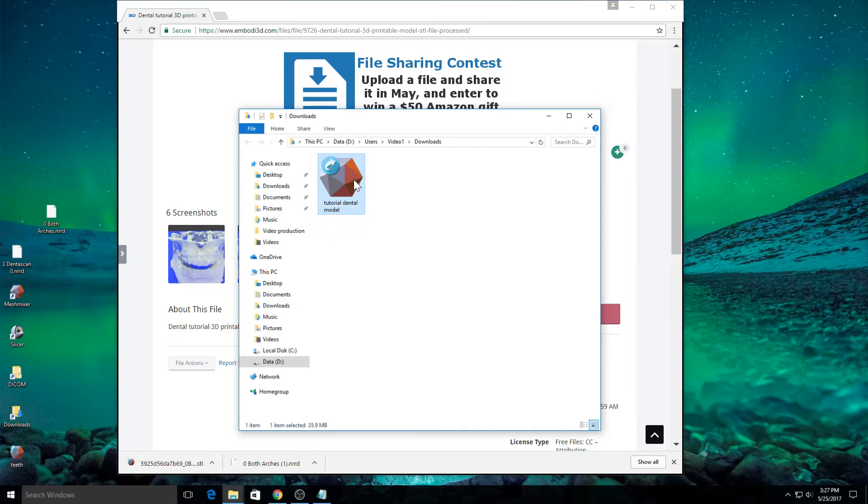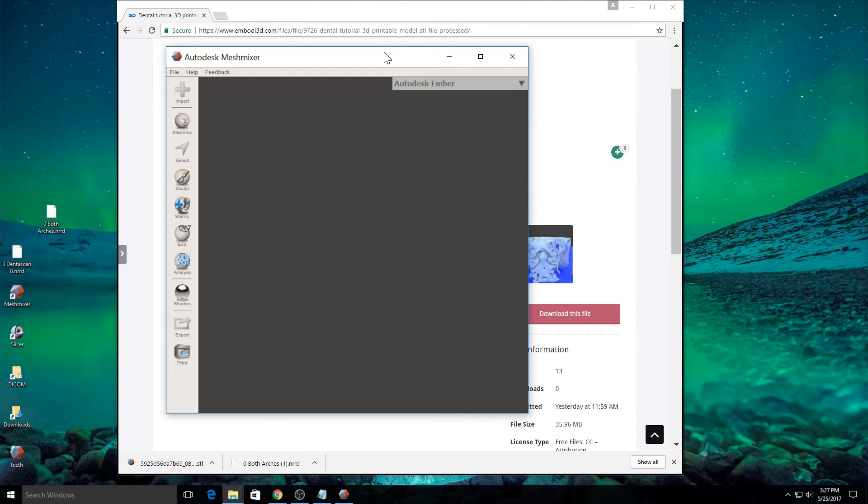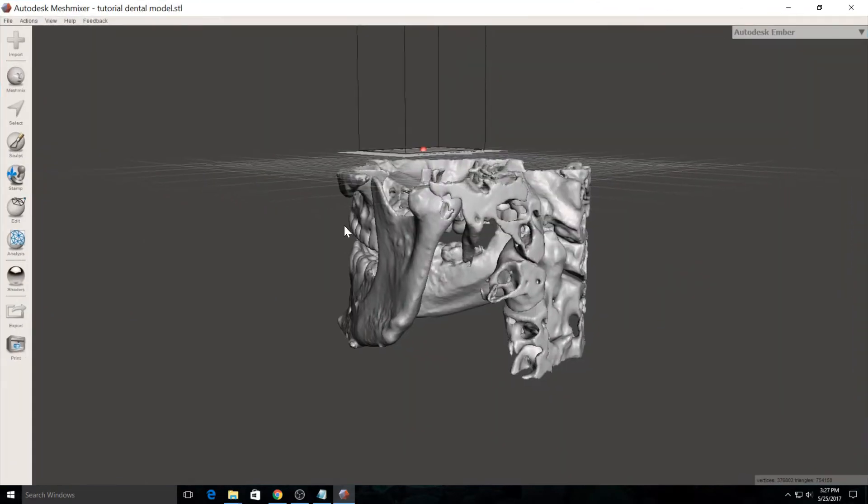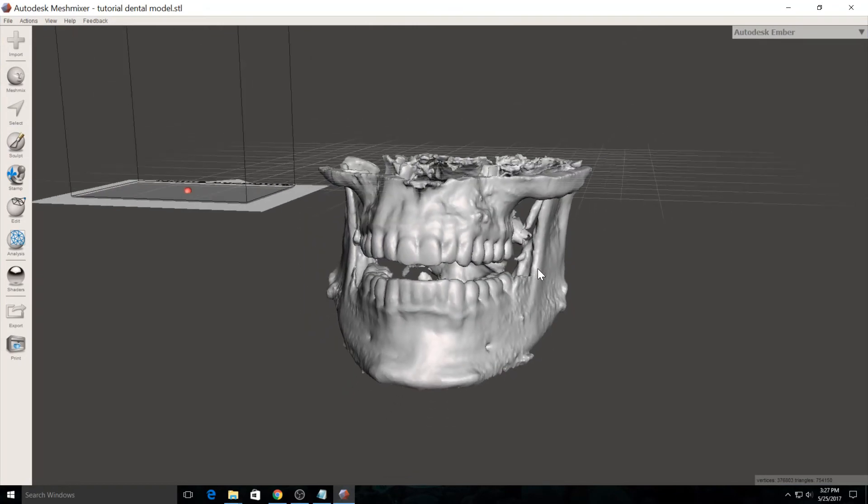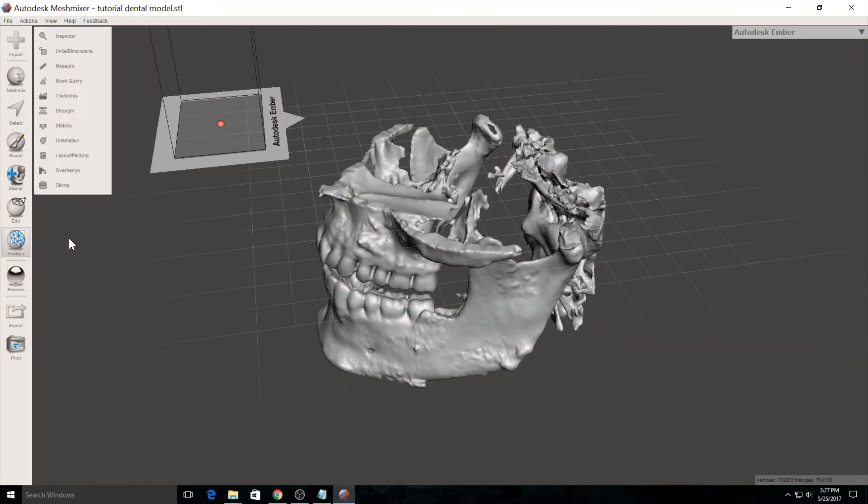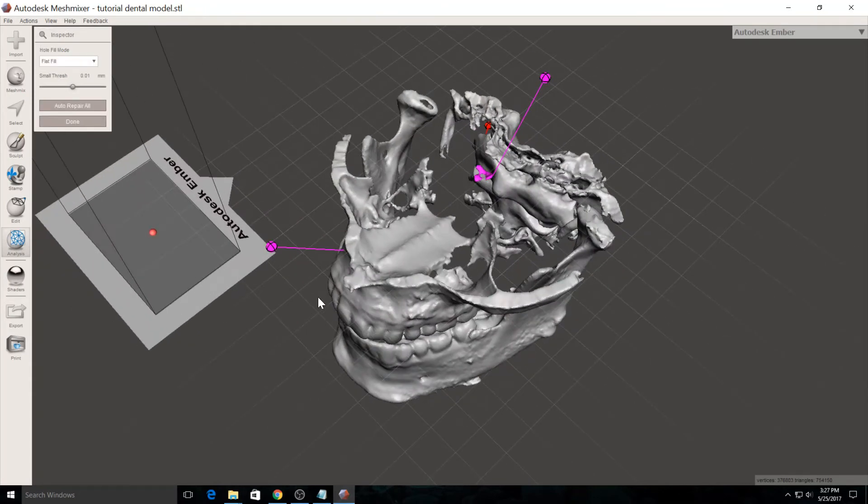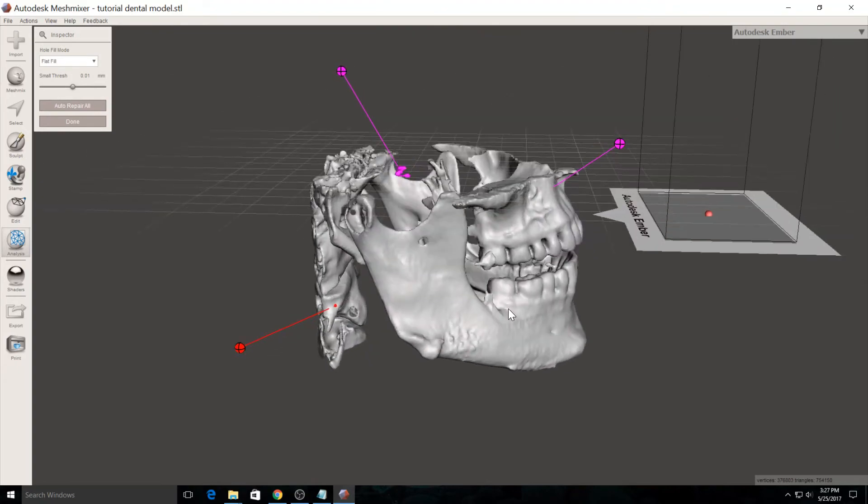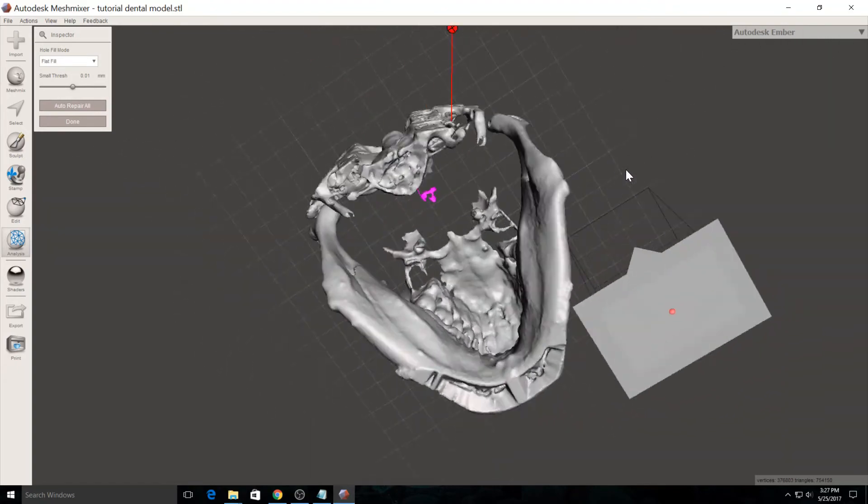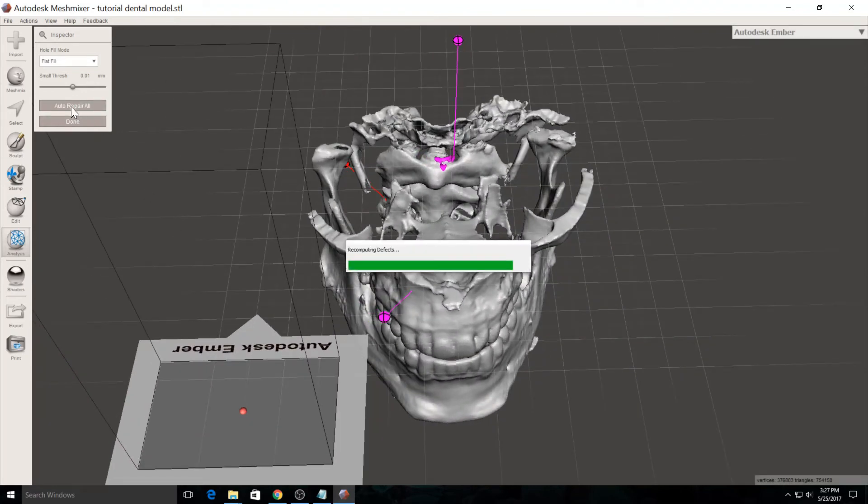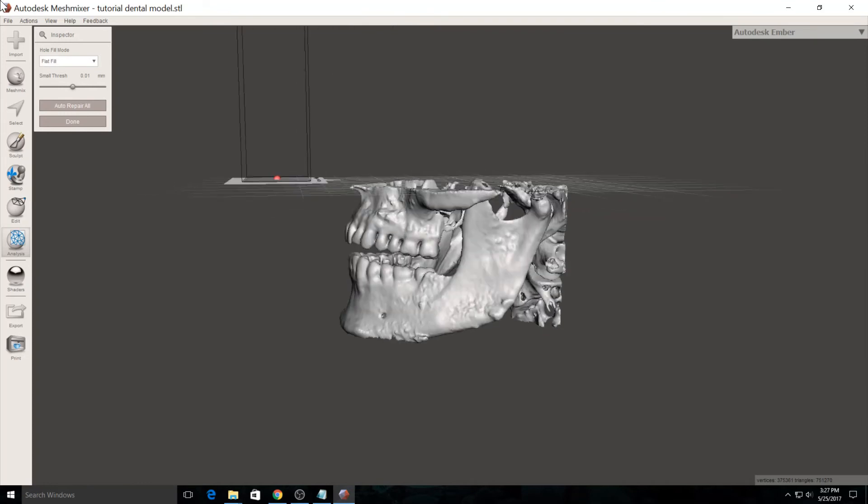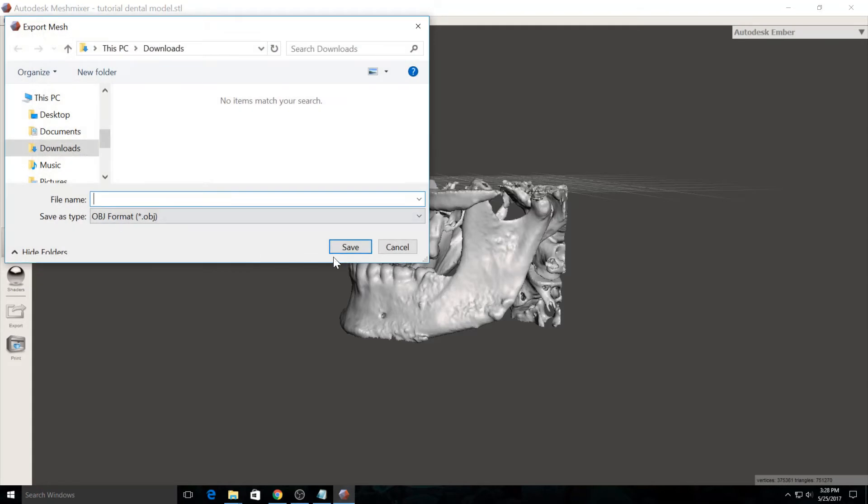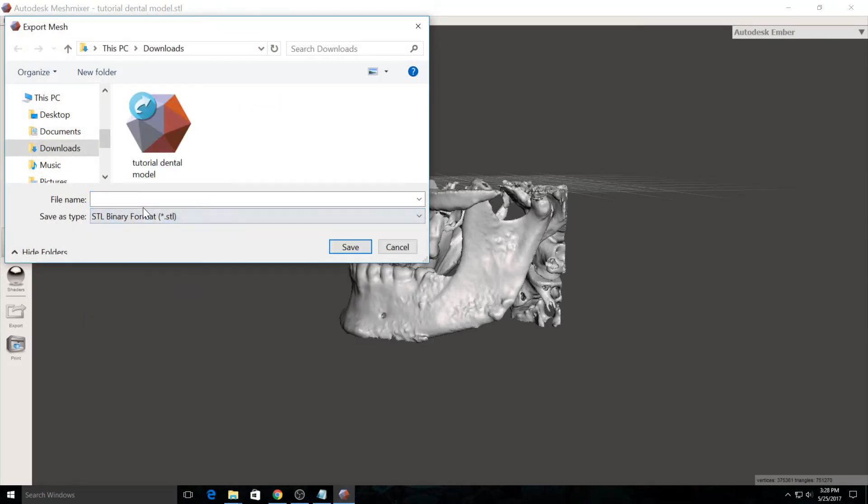Let's go ahead and open this in MeshMixer, which is another free software program, just allow us to inspect it briefly before we send it off to the 3D printer. Here it is. Looks pretty good. MeshMixer allows us to do some quick analysis. I'm going to click on this analysis button and click inspector. There's a couple free floating parts. There's at least one spot that needs to be fixed. That's pretty good. There's only three areas where there's a problem in this model. Easily fixed with auto repair. Boom. Now, this model is now ready for 3D printing.